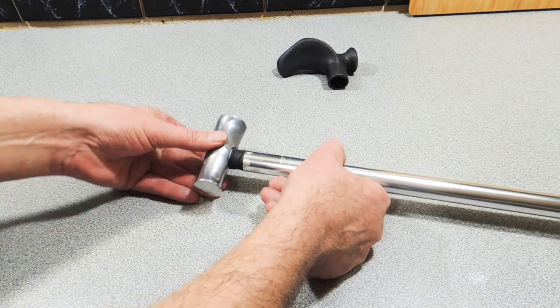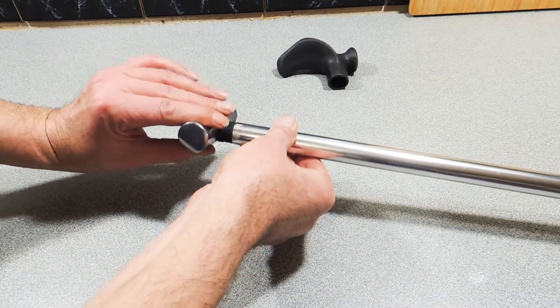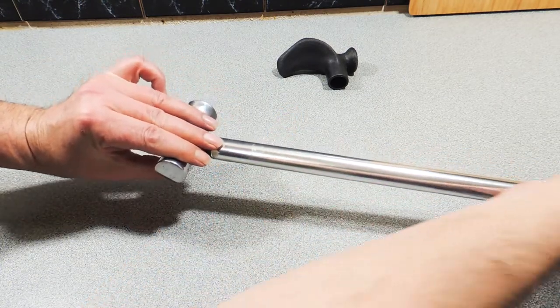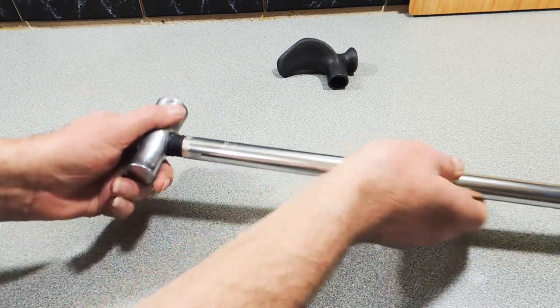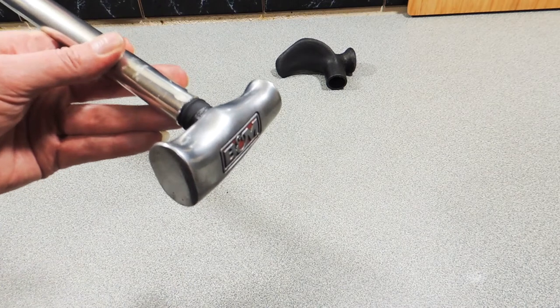So we've got some nitrile there, we've pushed that up over the top, it's going to make things a little bit smoother. It's a nitrile glove, just a pinky, we snip that off, put that in, turn the handle, make sure it's aligned and there you go, my new hot rod.